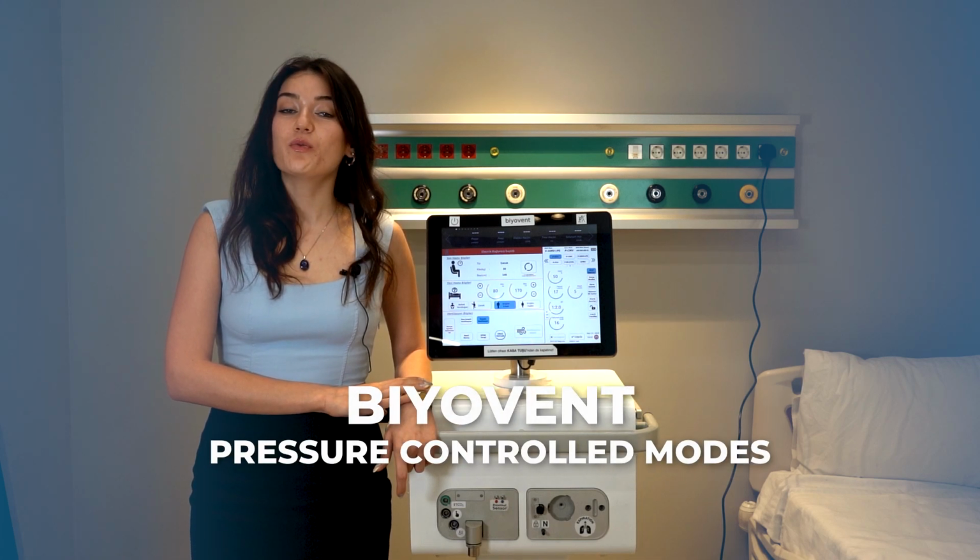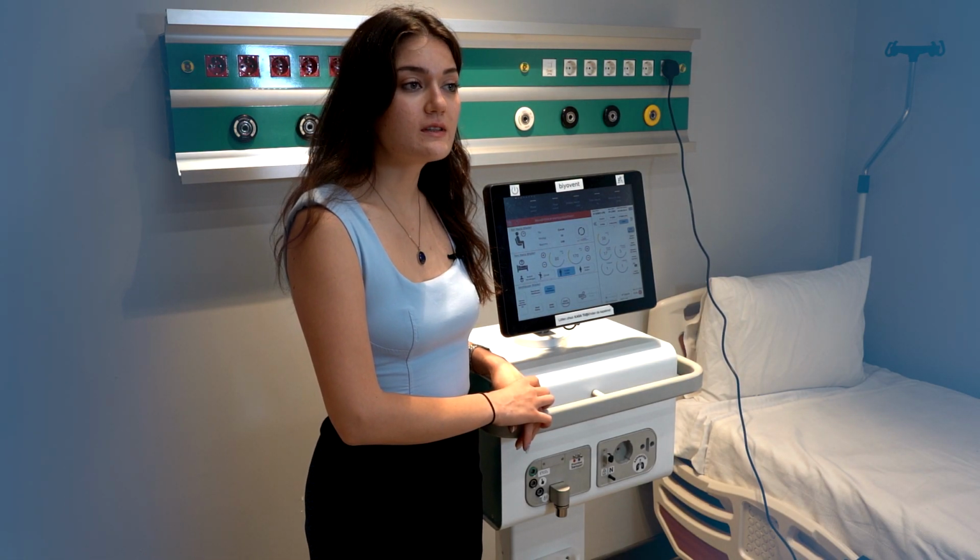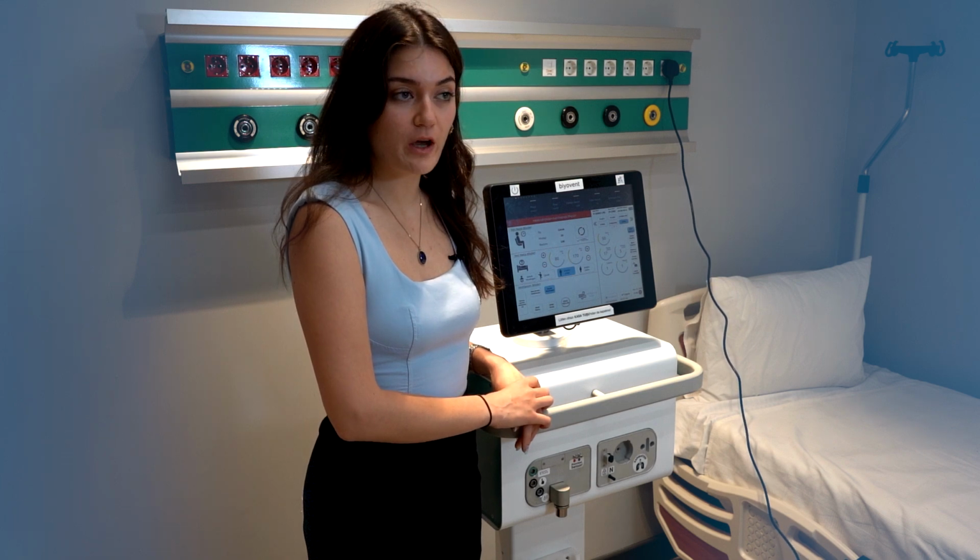Hello, welcome to the video of Biyovent Pressure-Controlled Modes in invasive treatment. Let me introduce you to the Biyovent, an ICU type ventilator produced by Biosys Biomedical.